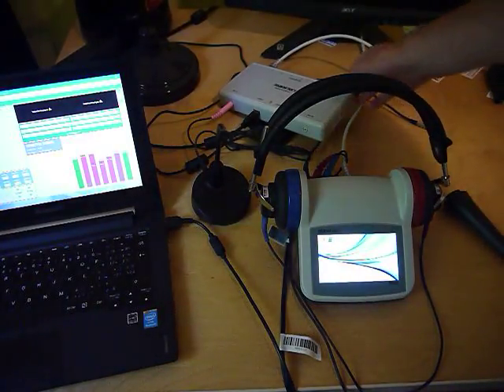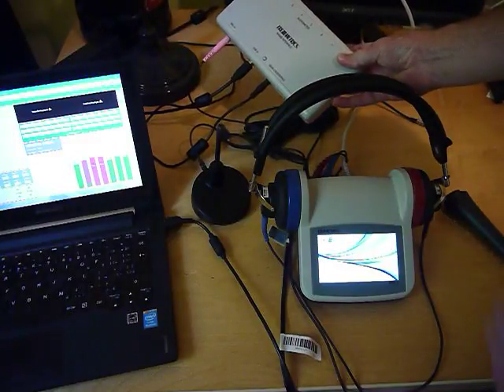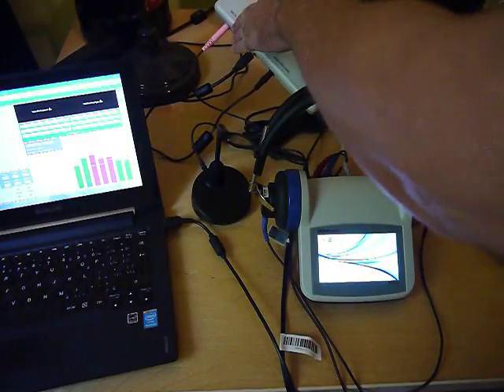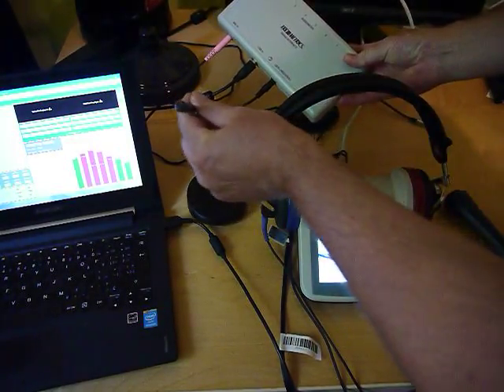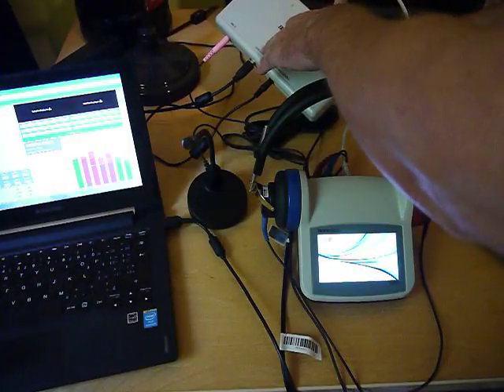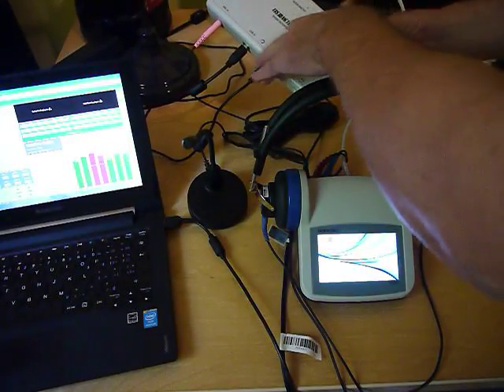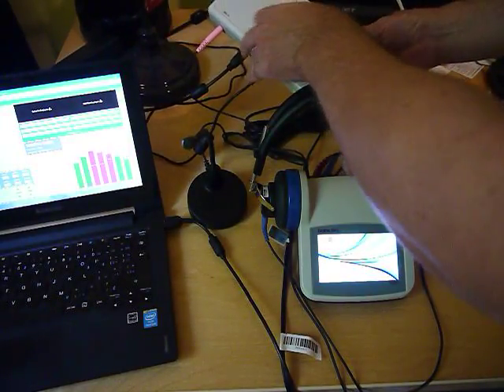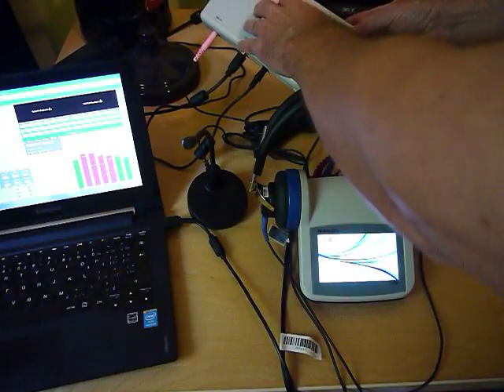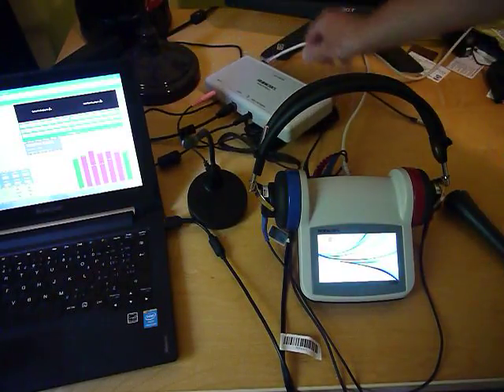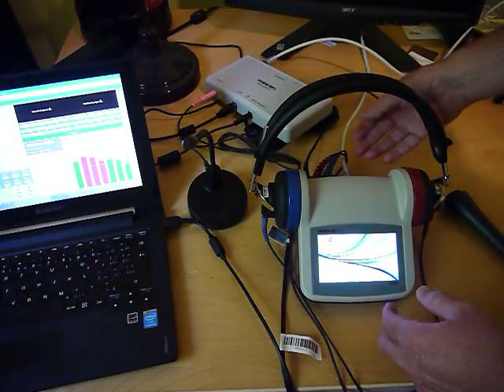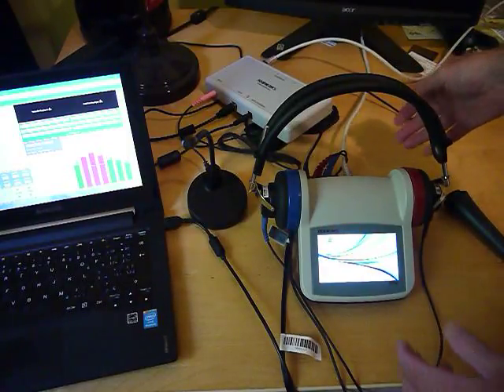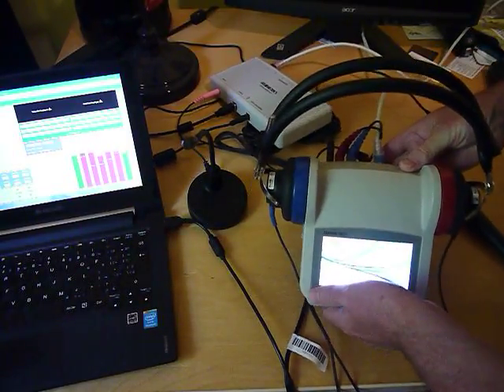This is the interface box where your talk over microphone is plugged in. You've got USB connection and also the power supply. This interface box can power up to 8 audiometers. I've got this cable going to the actual RA-660.